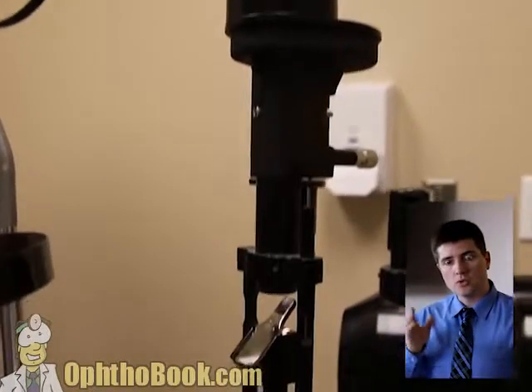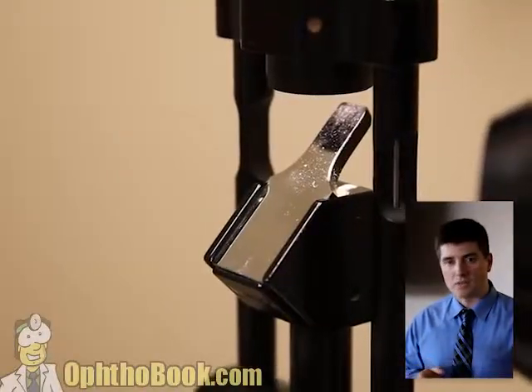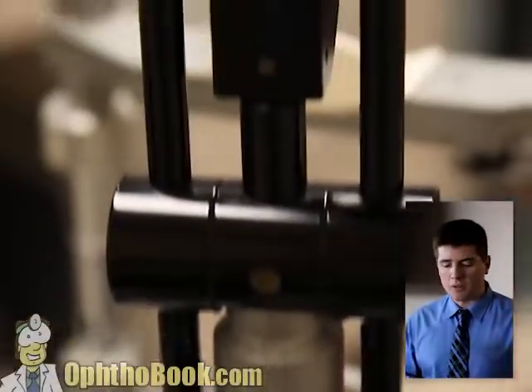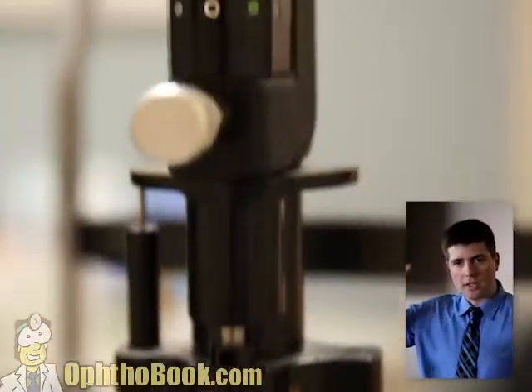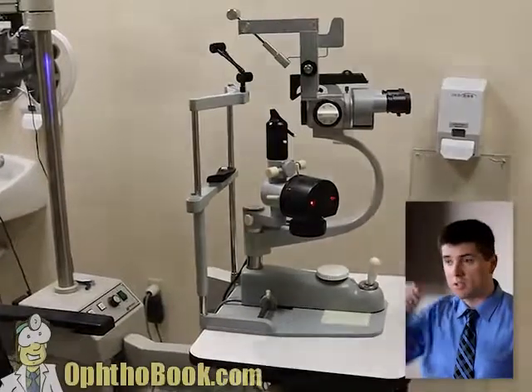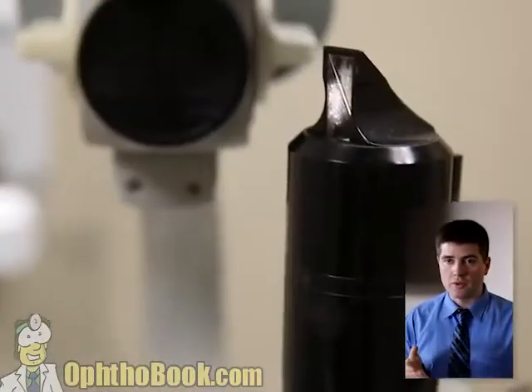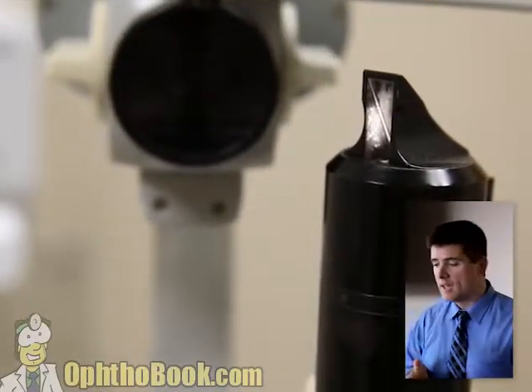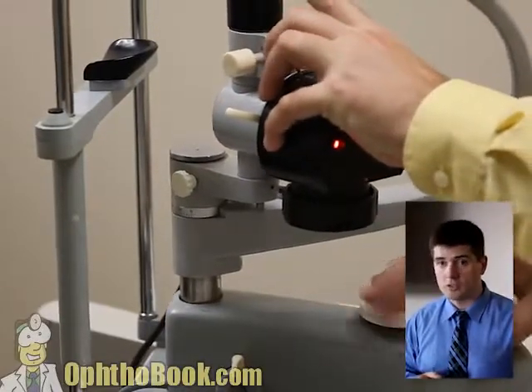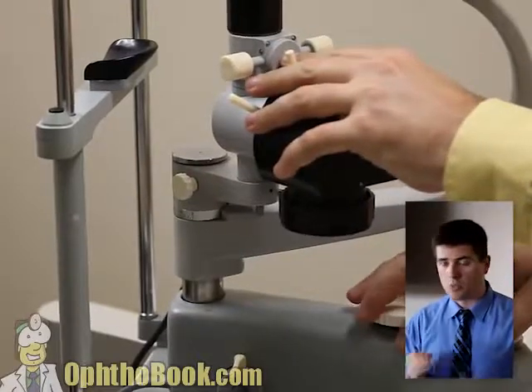On the Haag-Streit, the light is above, shoots down through various filters and lenses, and strikes a mirror before hitting the surface of the eye. The only problem is that the light column is so large and the controls are so spread out that you're constantly reaching above your head to use it. This is a Zeiss — the light is down below and basically shoots through various prisms before focusing on the eye — probably an improvement in design, but the ergonomics are just terrible unless you're a human octopus.